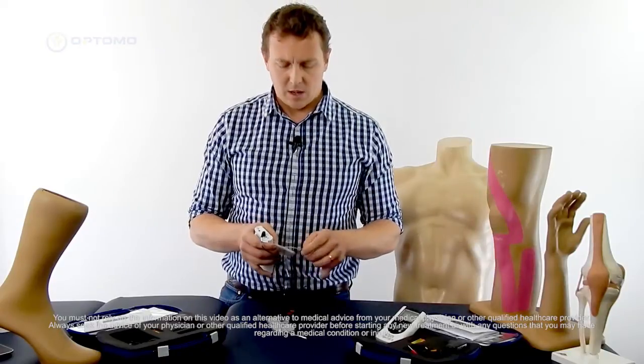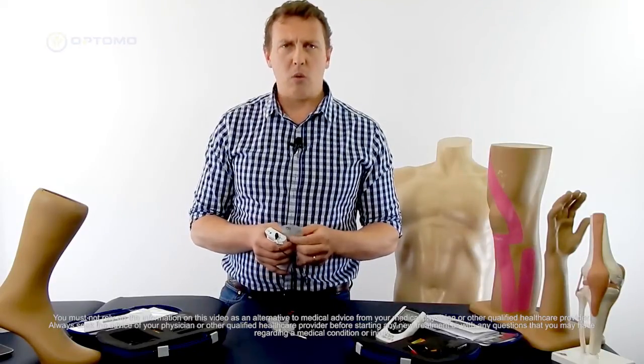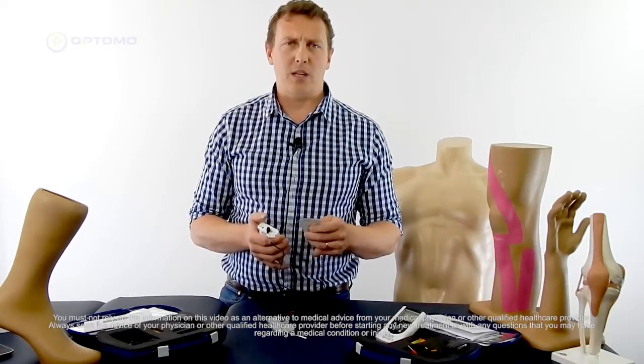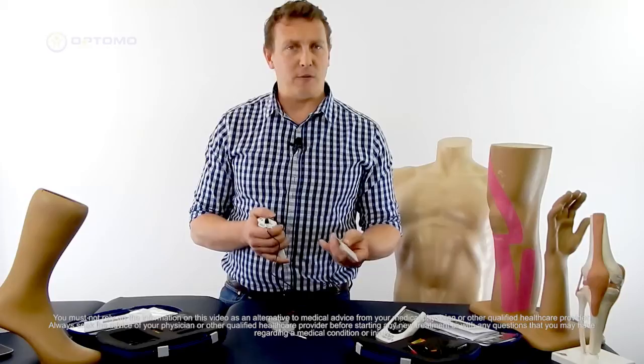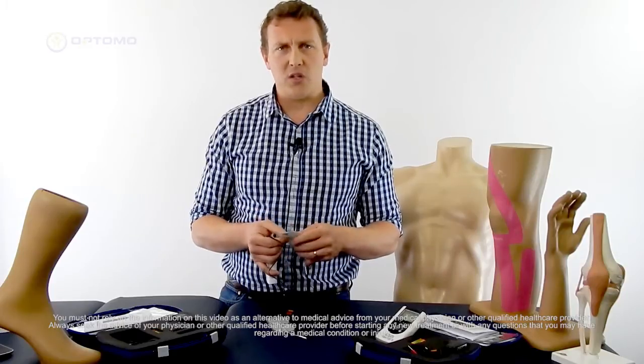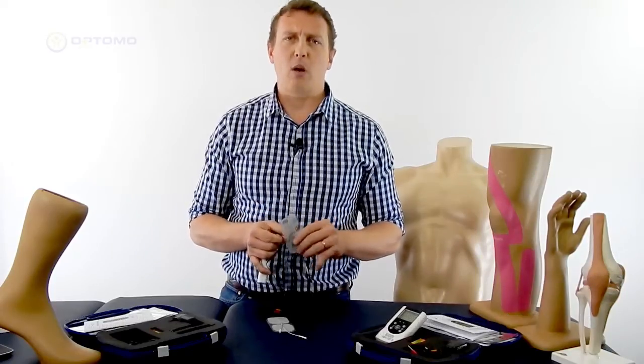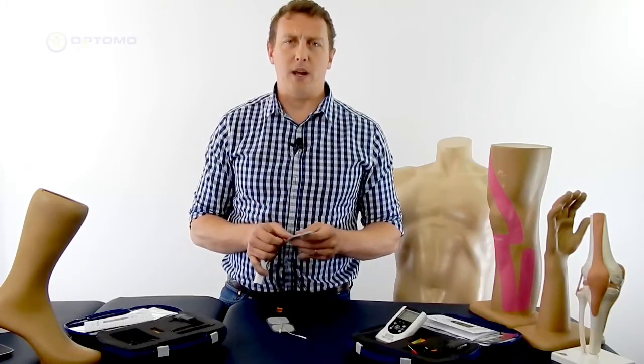In another video we'll go over the different types of electrodes, different sizes, and the differences between our whole electrode range.